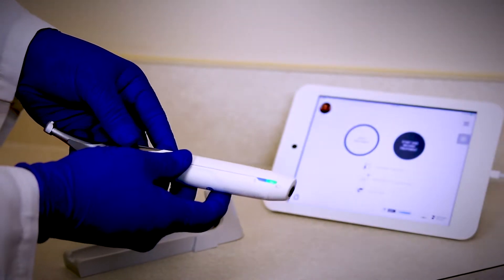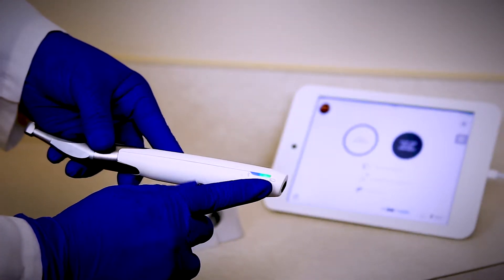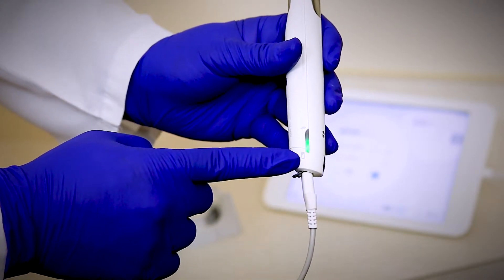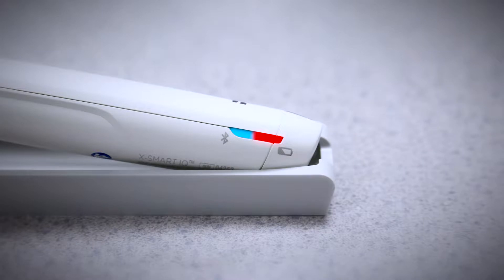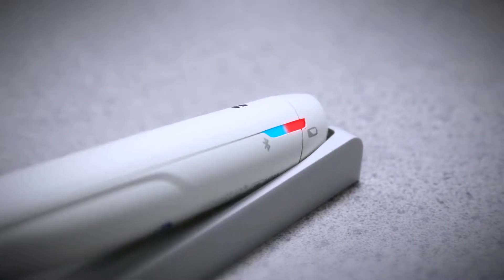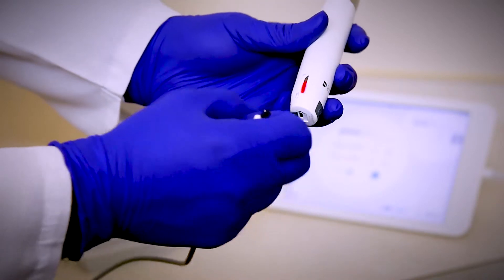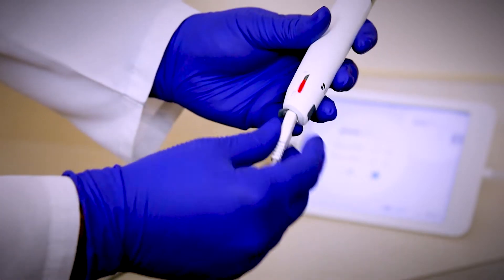On the other end you'll see the battery level. It's solid green when it's fully charged, flashing green while it's being charged, solid red when it's low battery, flashing red when it's critically low. When it's flashing red you can charge it and still operate during your procedure.